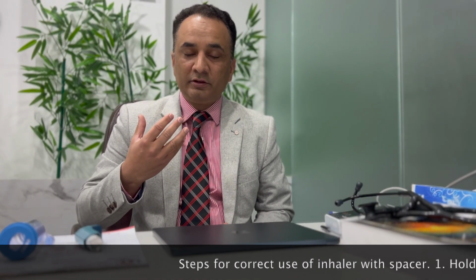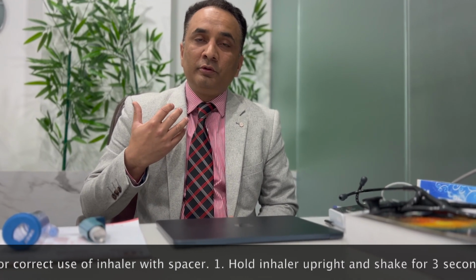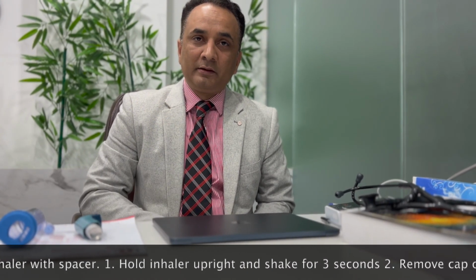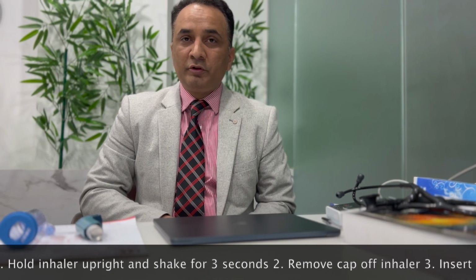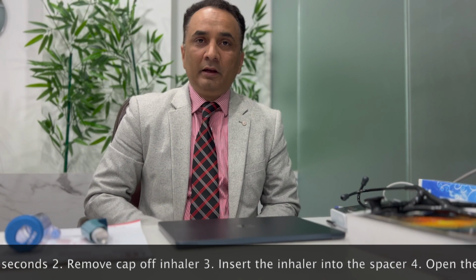But there are many other inhalers which come in a similar configuration, and we need to understand how to use them well to get better delivery of the medication into the lungs, to get the maximum benefit out of the medication, but also to reduce the deposition of medication in our throat and tongue area, so we get fewer side effects from that. So I'm going to demonstrate today how to use the MDI puffer with a spacer.